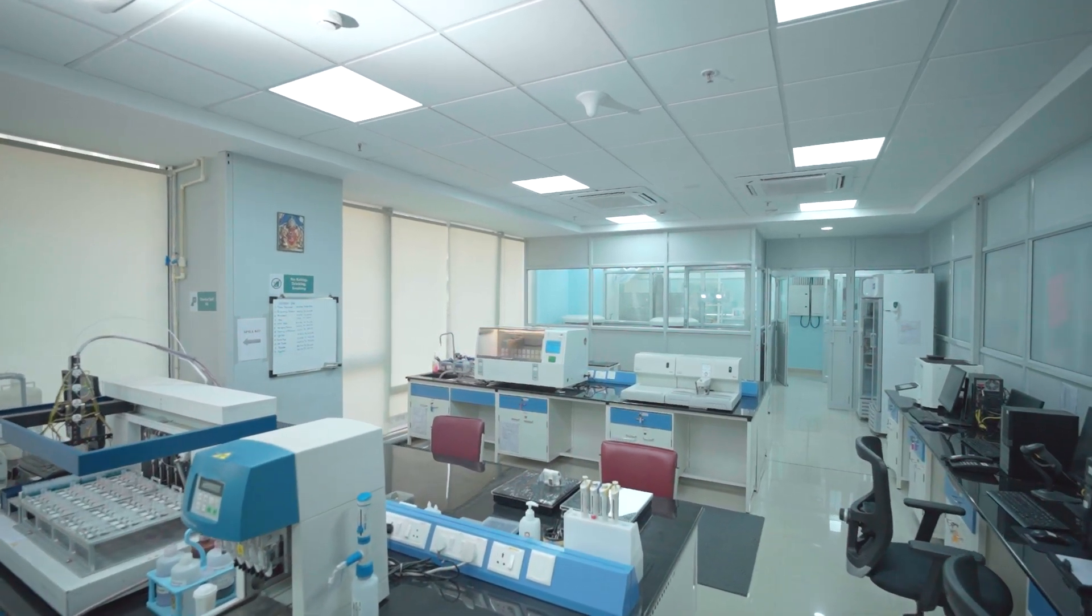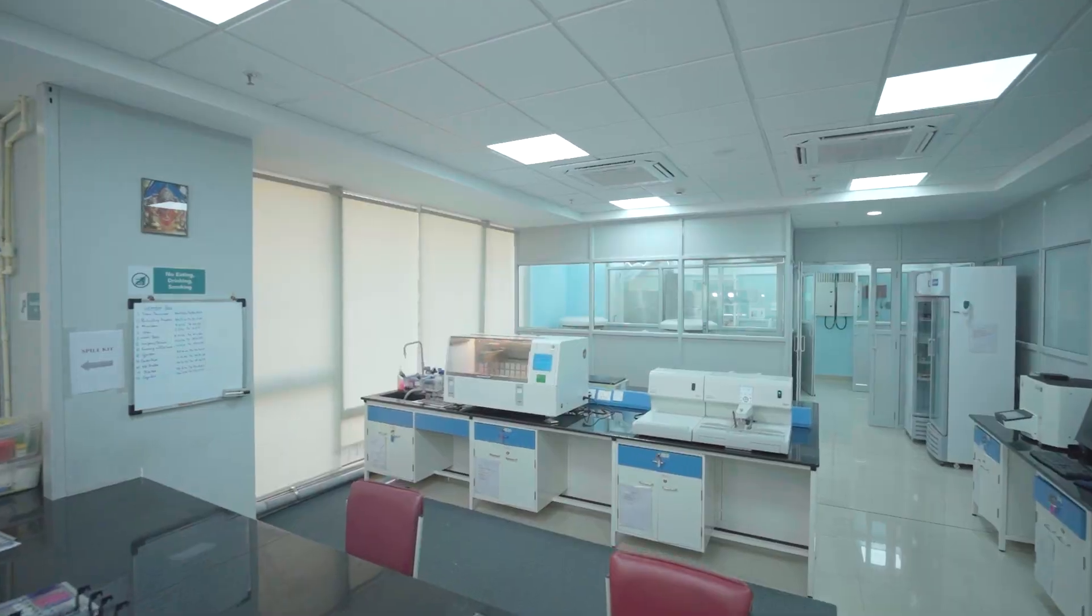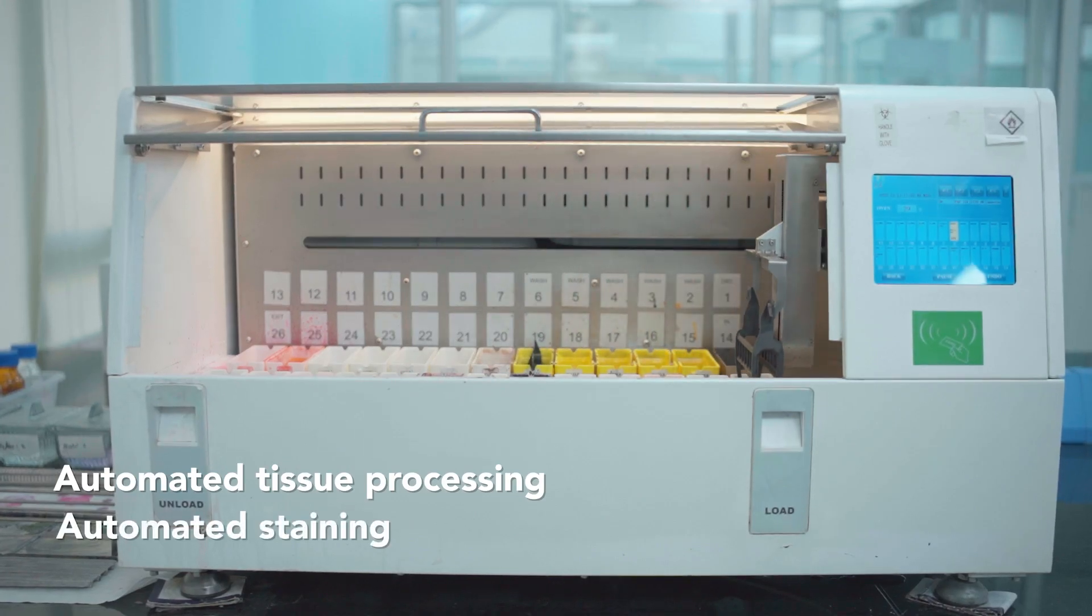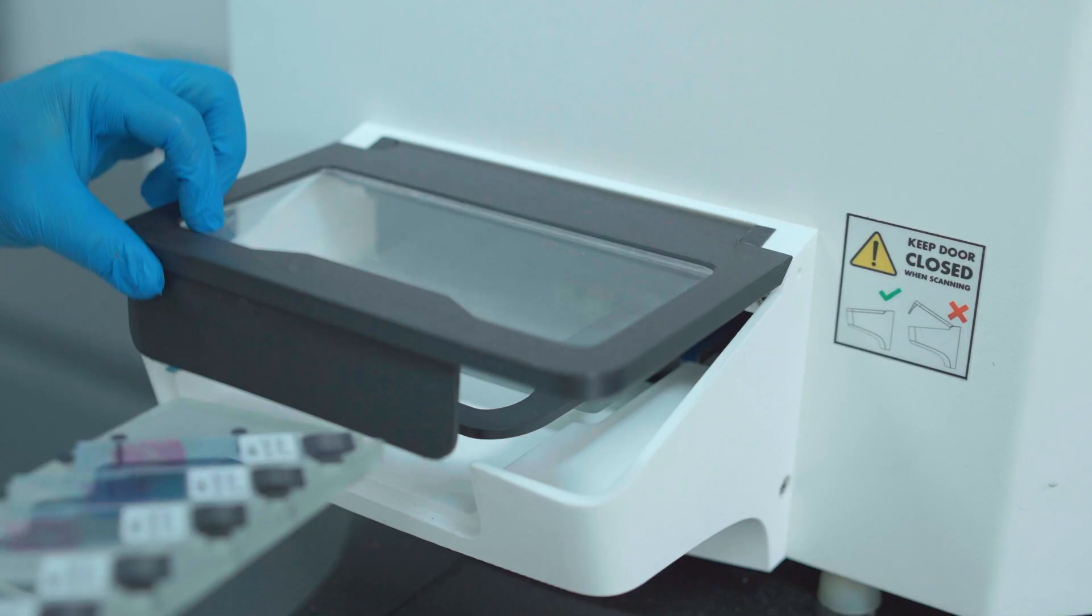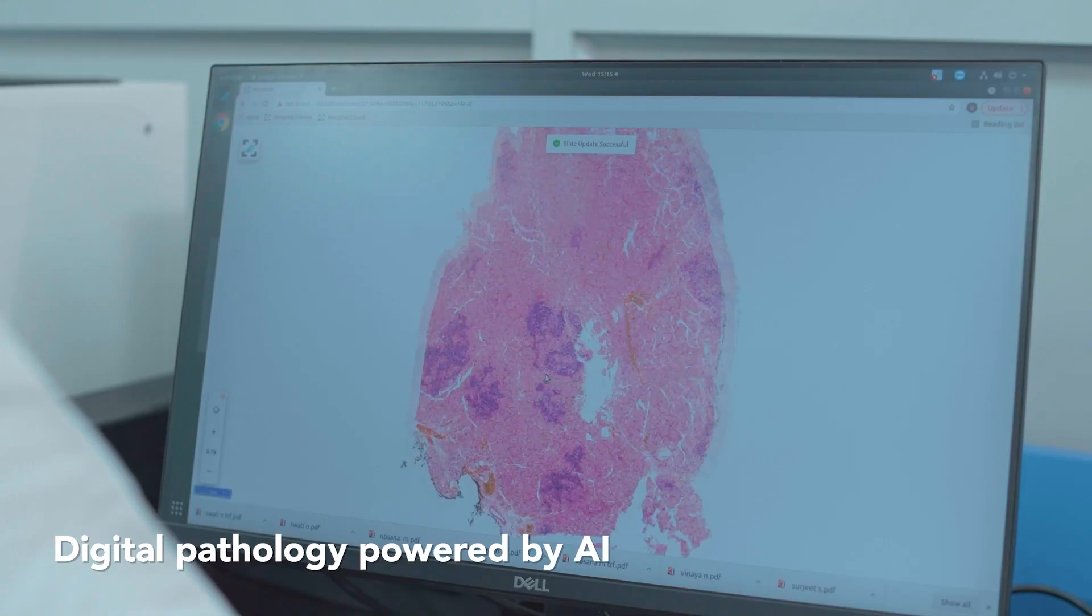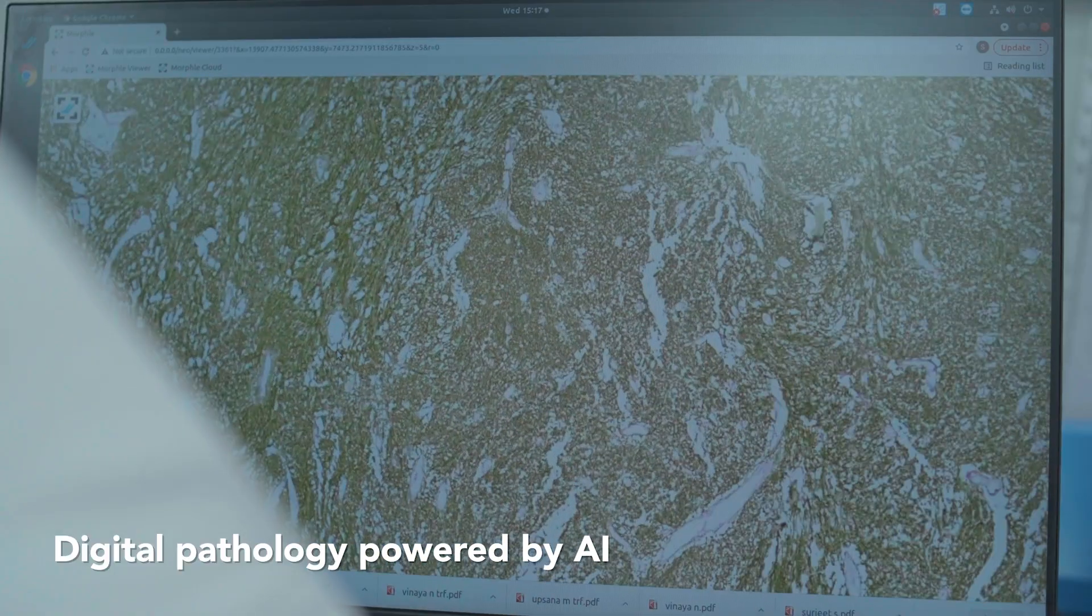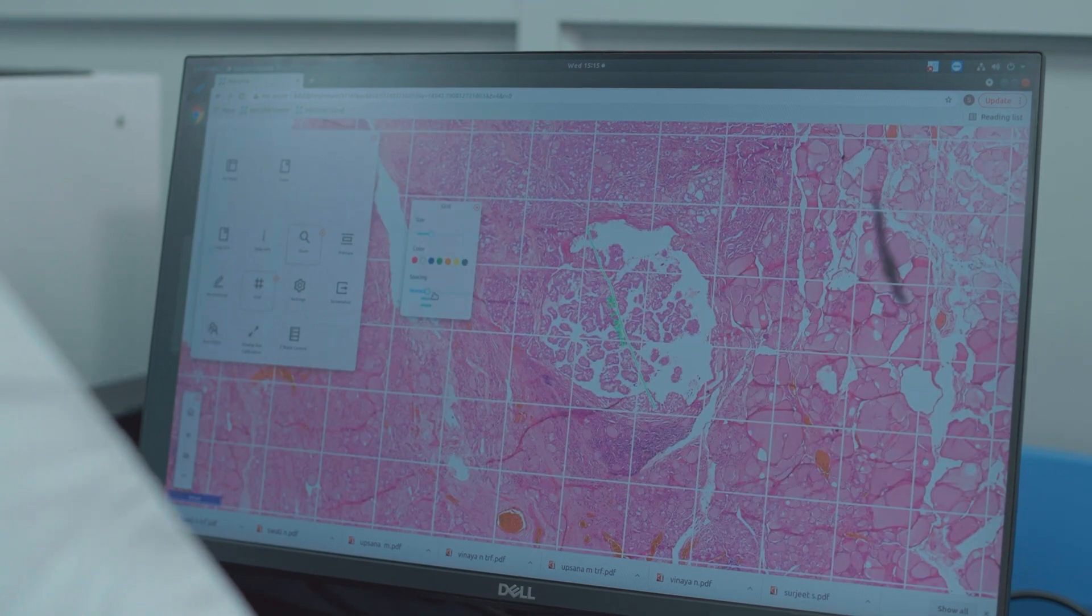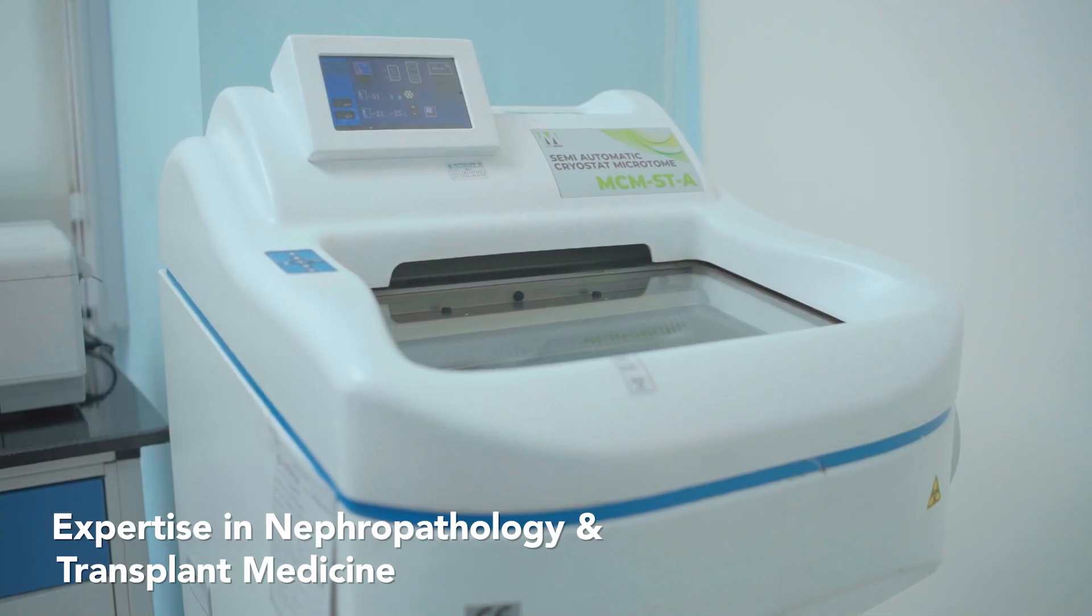Our histopathology department is extensively ingrained with technology. Automated tissue processing and staining ensure reduction in manual error, precise staining, and improved turnaround time. Slide scanners and use of AI enable digital pathology in many aspects, including the evaluation of IHC slides. Our histopathology expertise also extends to nephropathology and transplant medicine.